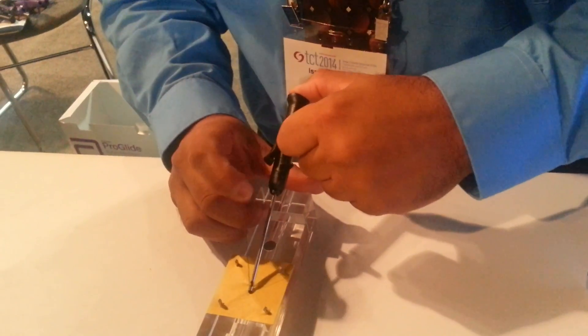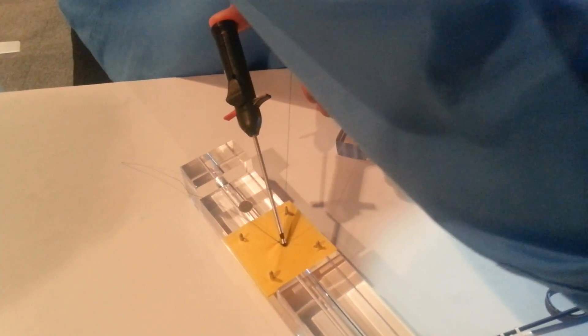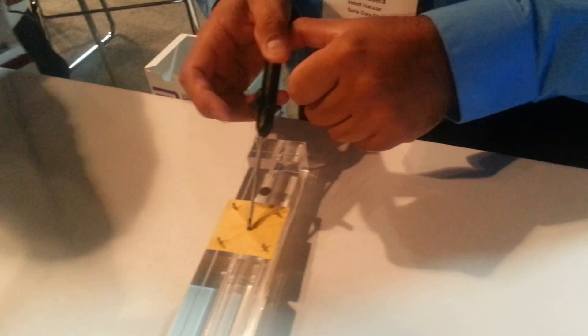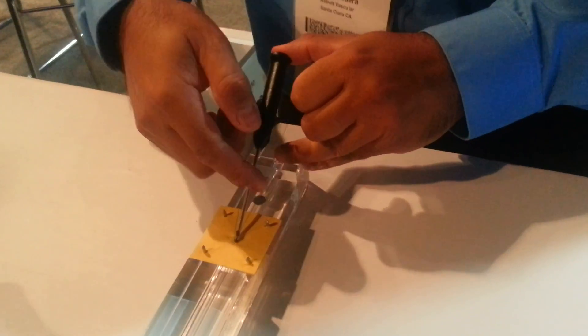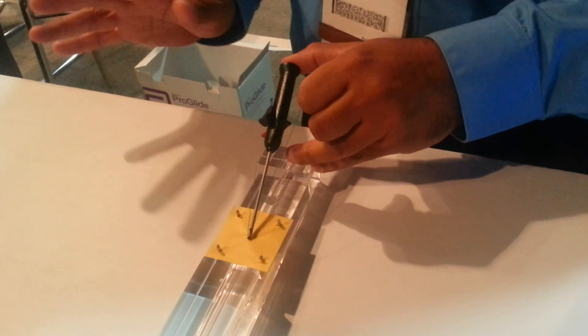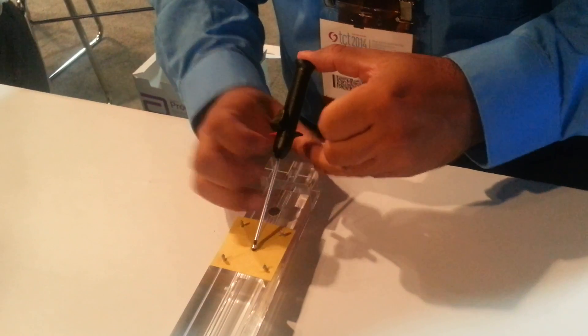And that's what you want to hear — do you hear how tight that is? A lot of physicians just pull, pull, pull, pull this finger — pull, more, more, more. So you hear this sound. There's hesitation by a lot of your colleagues to do it that tight — don't hesitate. If it rips, you still have guidewire access, you can go ahead and do another one. It's perfectly fine. So remember, it's okay to get it this tight.